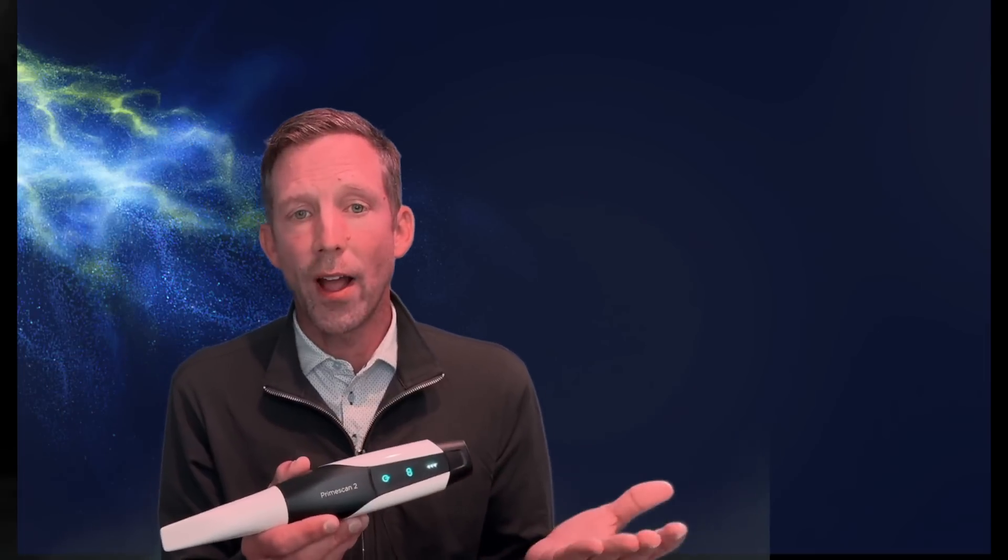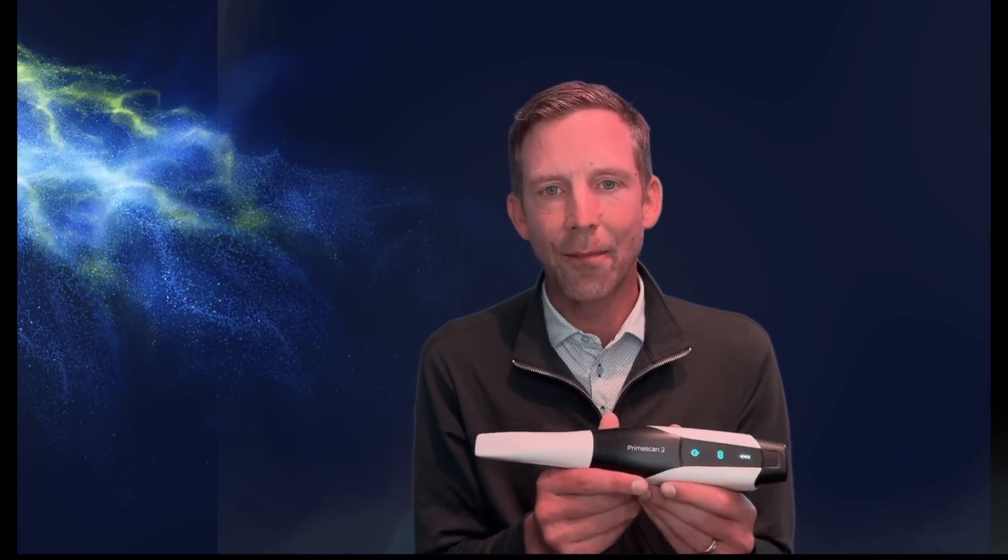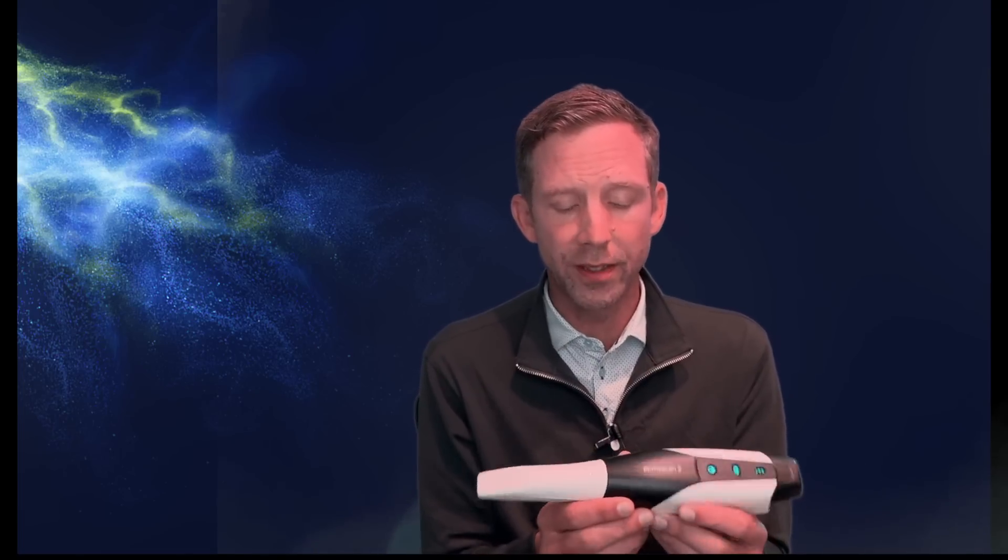So I hope you guys really enjoyed this introduction on exactly how the PrimeScan 2 works. I hope it gets your brain churning on the opportunities and the possibilities of this camera in your office. It's really the only scanner I use these days. It's just so much more portable. And like I said, there's other wireless scanners on the market today, but you need to have laptops and use Splashtop to communicate room to room in some of them.